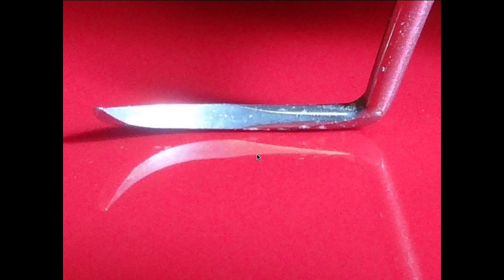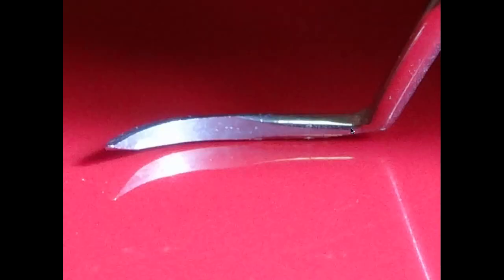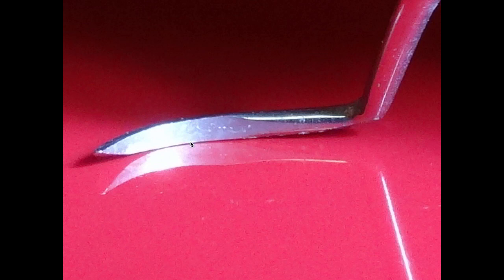Let's look at closing the gap here. You can see where we've closed that gap. Here's the edge of the instrument on the heel where we're going to sharpen that. We've closed that gap. So that's what you're after against that sharpening stone.